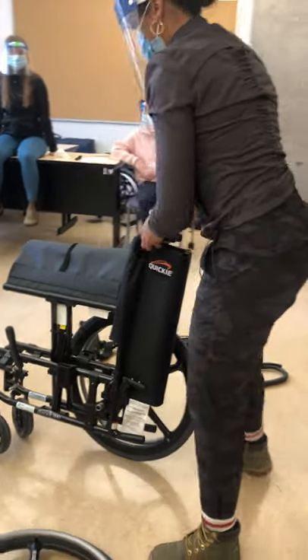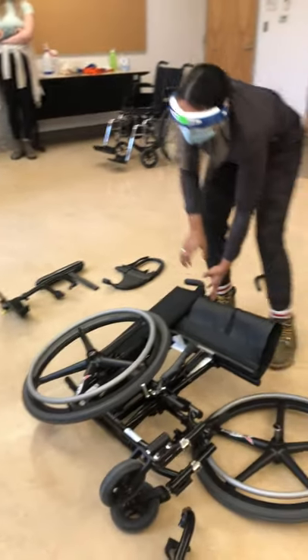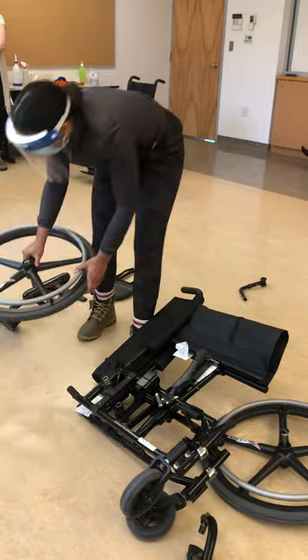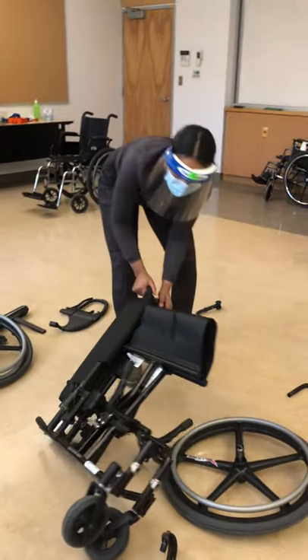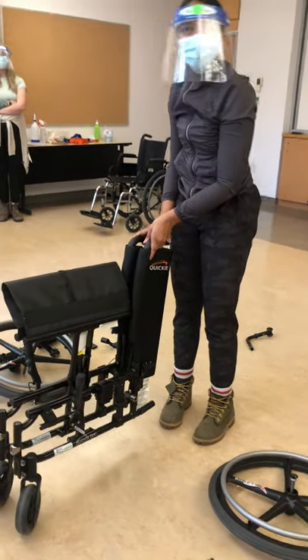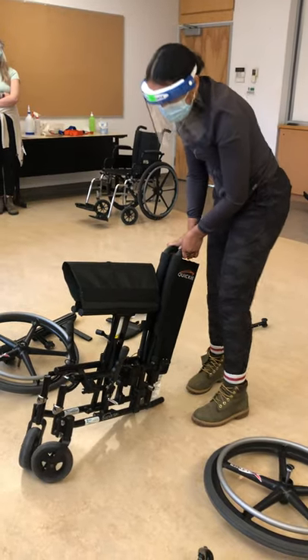We're going to do the other side as well, and that is it — that's really the hard part. Now we can put it back together.